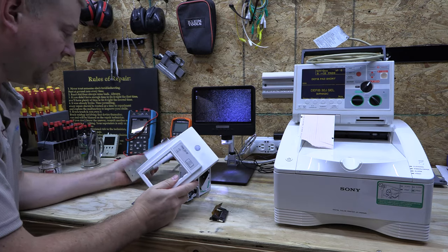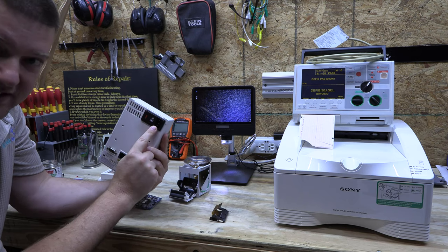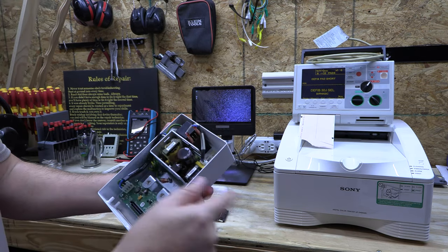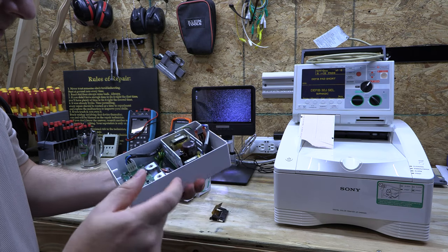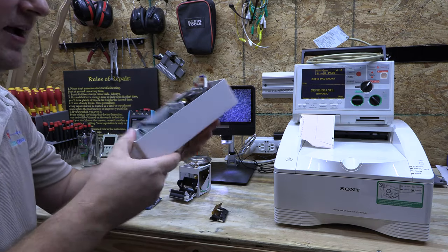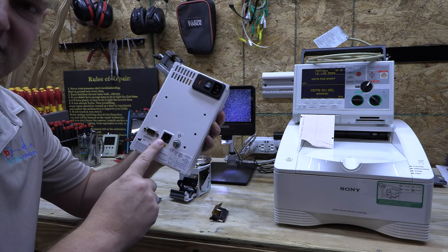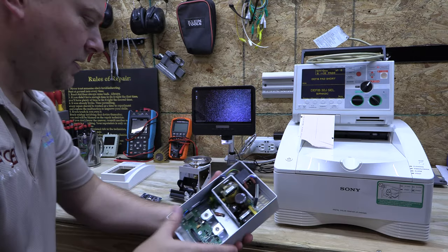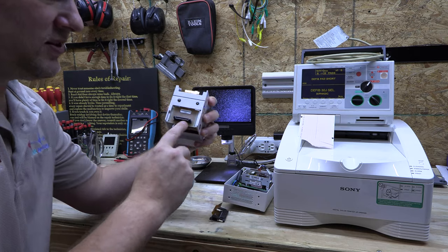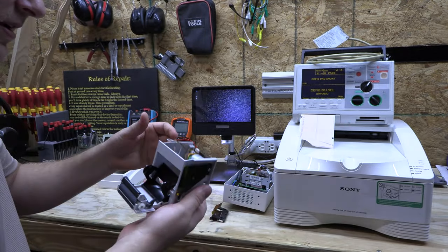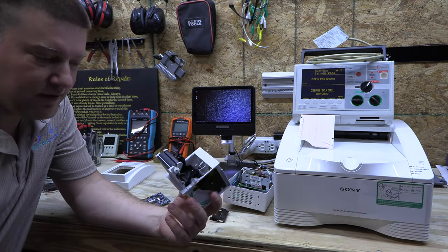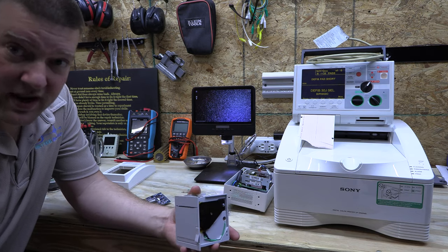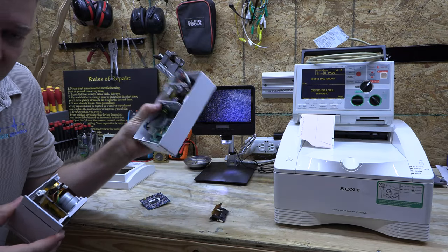This is a regular GE printer. It has an integrated power supply. You can see I've got the IEC power input module. On the inside, you can see that the AC mains comes down to a DC regulated power supply. And then there is a communications board, which is right here on the back. And it communicates with your system, your telemetry system. And it also communicates with the printer because these printers can be quickly swapped out. You can see the back of the printer. GE actually thought about this. They have two little screws you can take out and you can change out the module. So if somebody breaks off the front door or something like that, or you get a defective printhead, you can actually swap out the whole module.